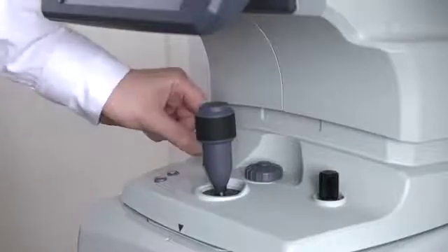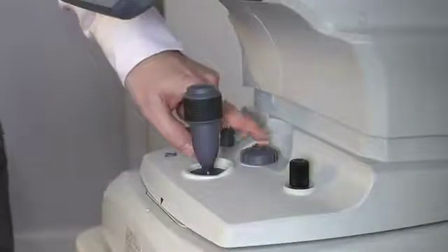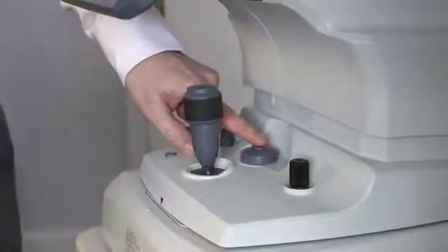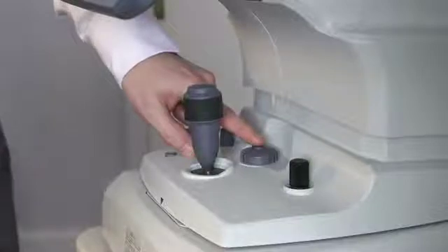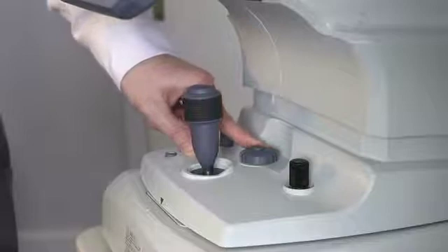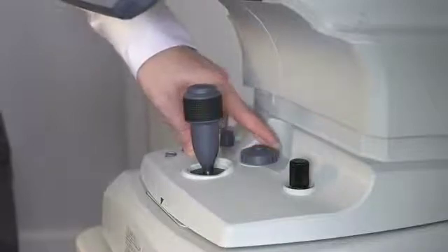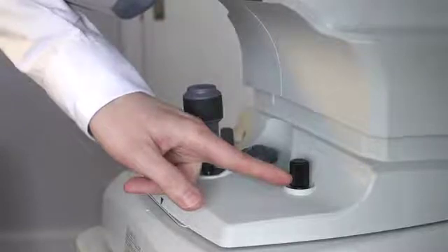We have the internal observation illumination button. At the back here, the button is used in manual mode when we are moving from anterior eye into the fundus. The wheel is used for manual adjustment of focus. Over here is the locking button just to secure it when the device is not in use.